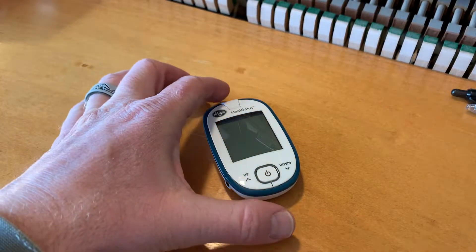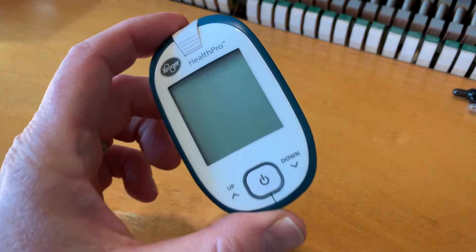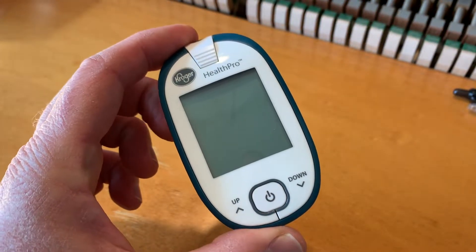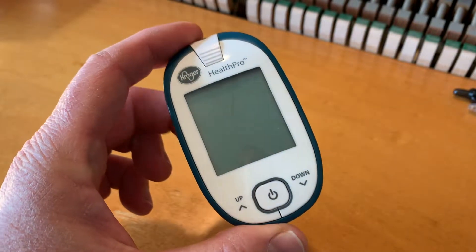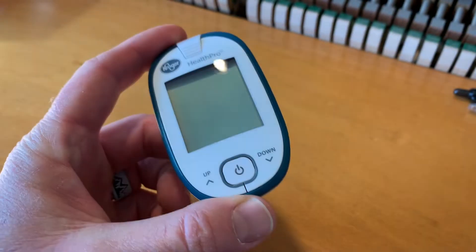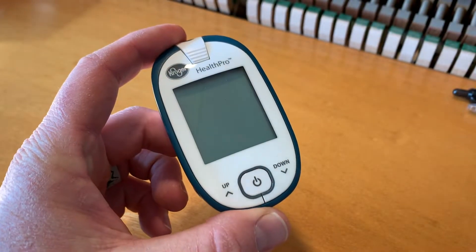Hey there friends, on today's video we are going to be setting up this Kroger Health Pro Glucose Monitor. It's actually really easy. Let's get it going.